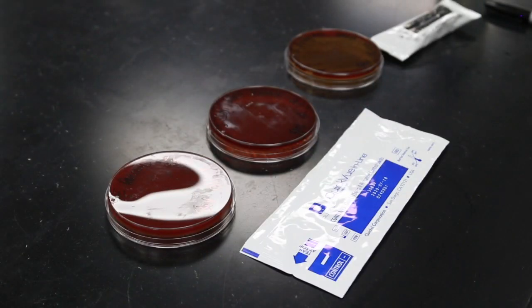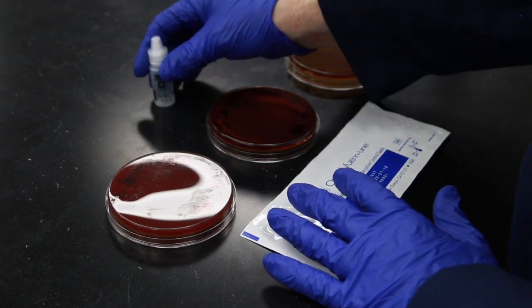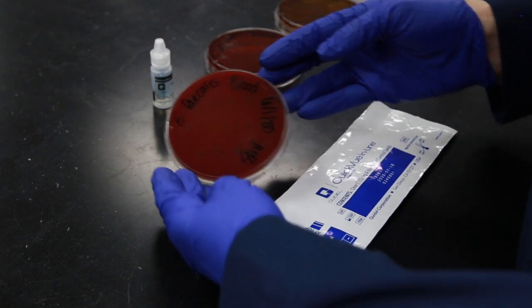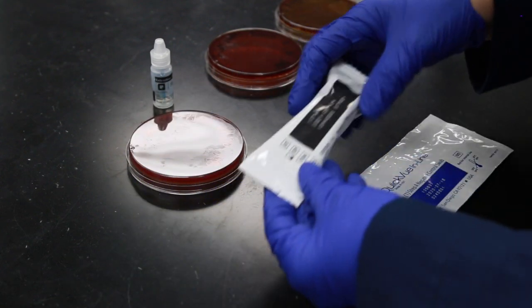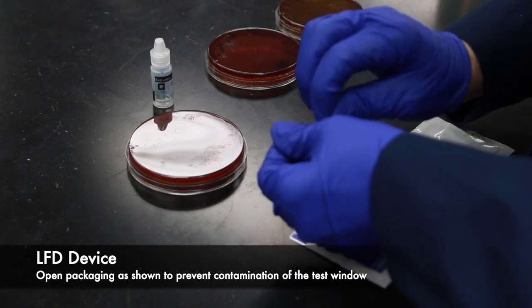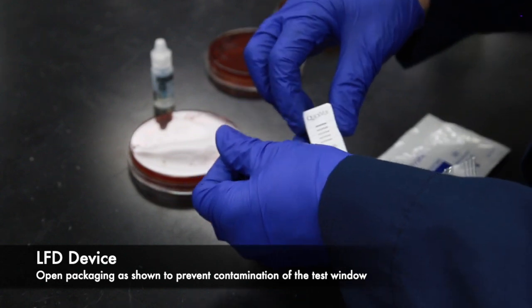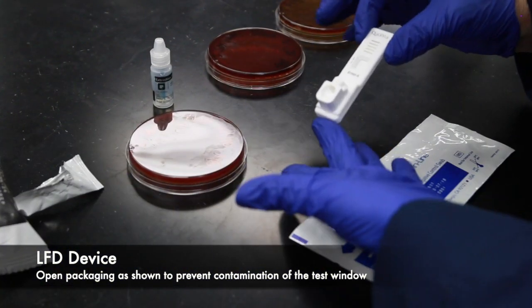To begin the lateral flow device test, or the rapid A strep test, we first have to prepare the materials. We're going to be testing E. faecalis. To get started, first open the lateral flow device. Make sure that you open at the notch in the packaging — this will ensure that when you pull the device out you don't contaminate the test window.